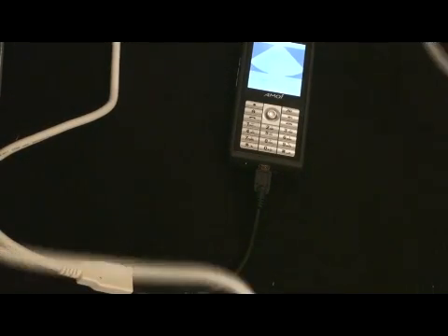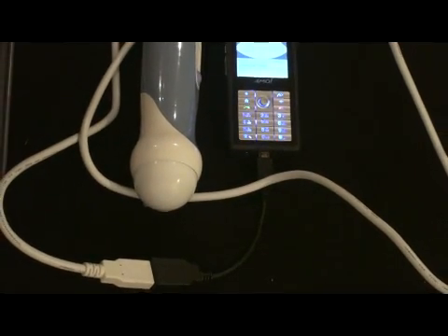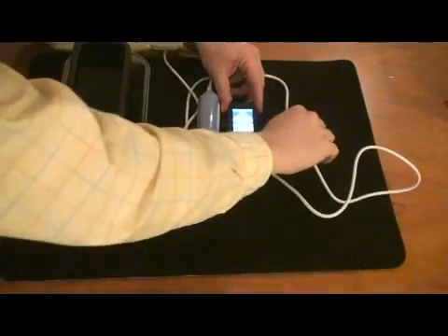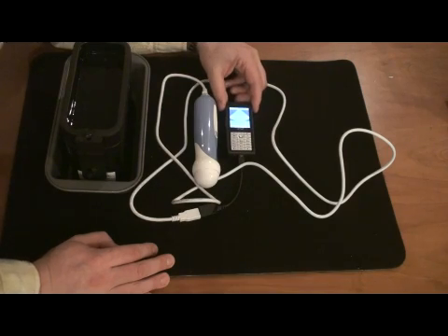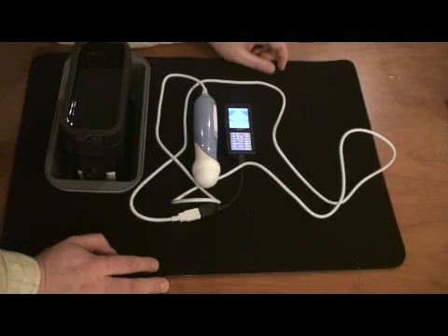I'll put the phone over here — it's got this big long cable, so we could be imaging a patient. And there you have the complete system. You have a probe, no external power source, no external data processing needed. Of course, being a cell phone, it also has a network built in to the 3G network. You could send the saved image data to anyone around the world — uploading it to websites, emailing it to people, or using dedicated applications with back-end databases.